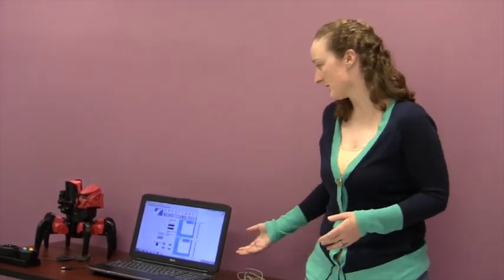This is transmitted by the BioRadio wirelessly to the computer, and then the computer makes the decision about whether or not the individual intended to activate those muscles.